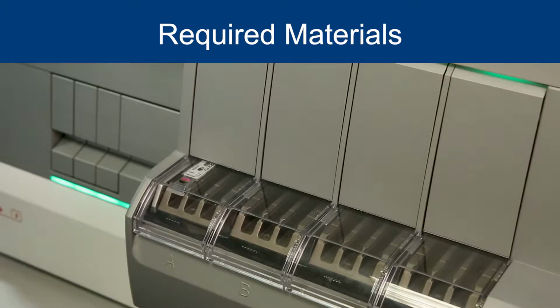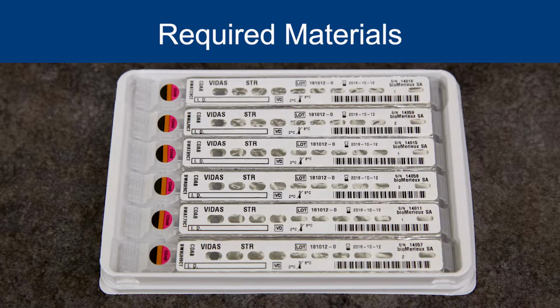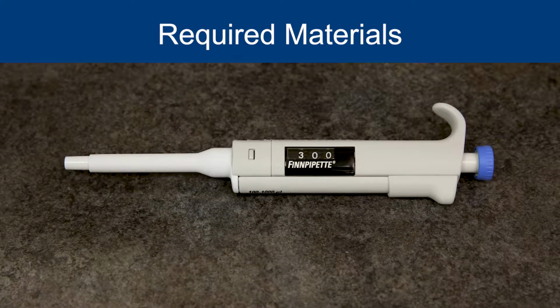You will need the VIDAS 3 instrument, the VIDAS C. difficile Toxin A and B CD/AB assay kit, part number 30118-01, and a calibrated pipette with disposable tip to dispense 200 microliters, 300 microliters, and 1,000 microliters.